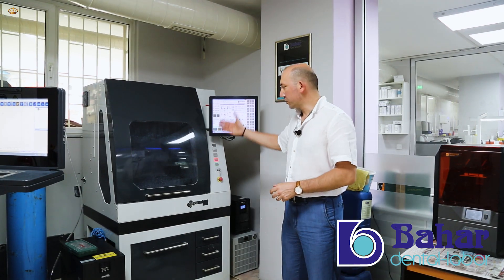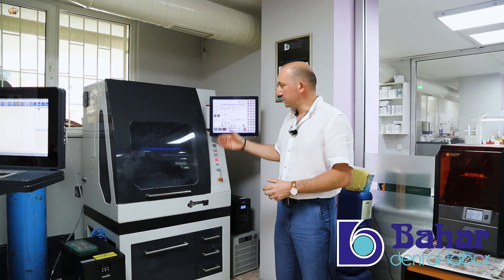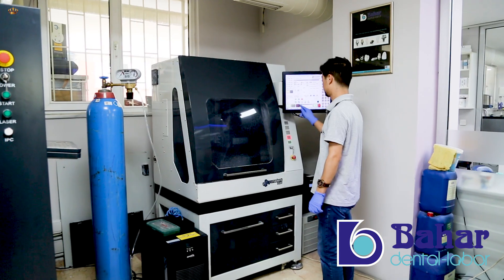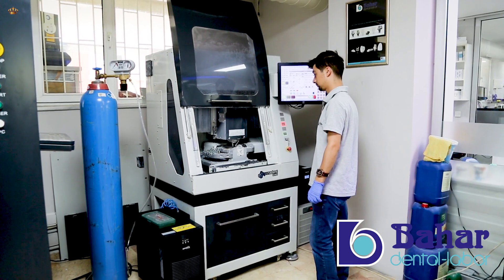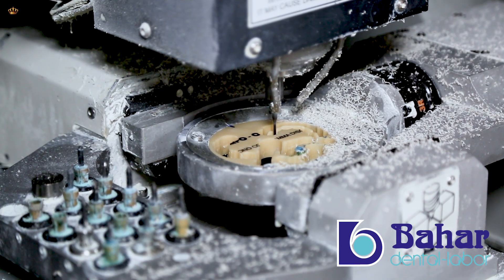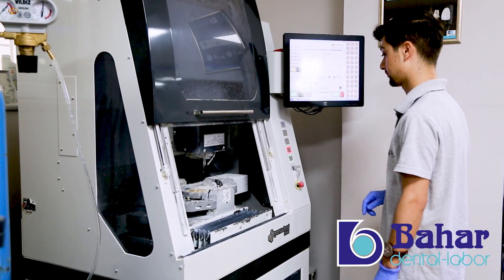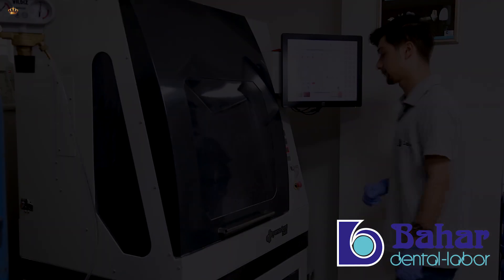Zirconium dioxide frameworks that have been designed in the digital environment are processed in the CNC machines that you see. In addition, frameworks such as custom abutment, custom telescope and bars, custom hybrid prosthesis, and custom Toronto Bridge are created in this machine. Zirconium frameworks of high quality can be produced in this machine too, besides our other machines.